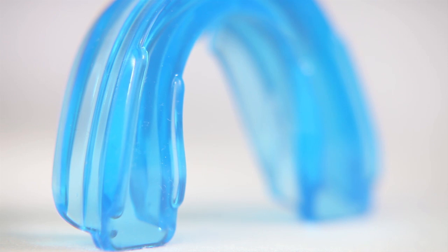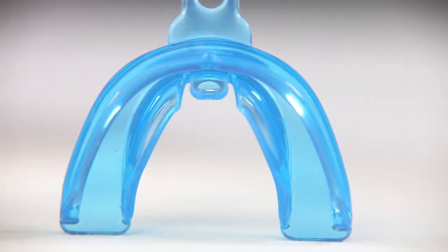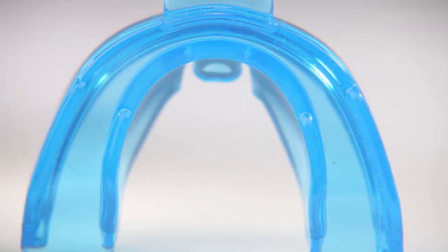The braces mouth guard meets NFHS wrestling rules requiring full coverage of upper brace brackets if an athlete has only upper braces.